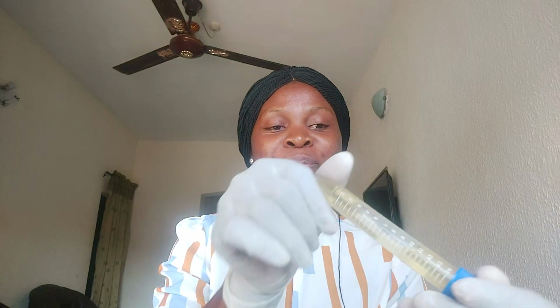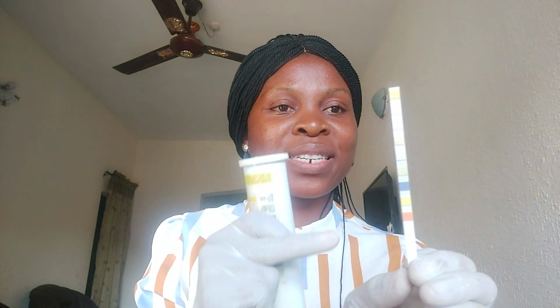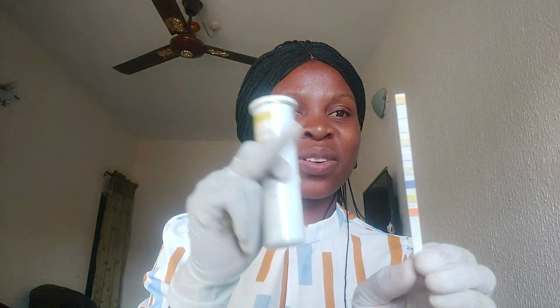When you get the urine sample, each sample represents a patient, so you have to handle it with care. You have to mix very well. Then get your combination strip. See how it looks. Get used to the colors. The first one is red, the other one yellow, the other one blue. Others are more plain. So when we dip this combination in this urine, let's see the changes so that we can read the results together. So we are doing sample 1.